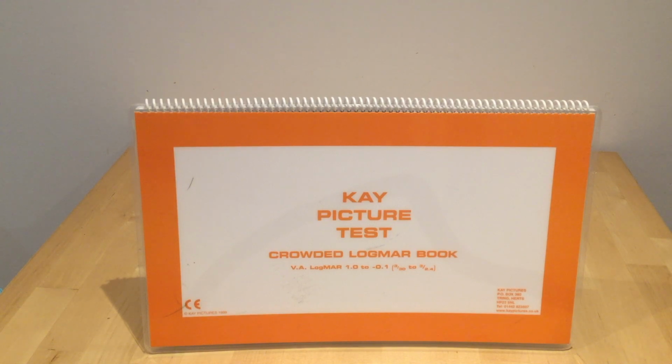and people often come back from being out on visits with lots of post-it notes stuck to the pages so that they can come back and figure out what the acuity was that the child managed to get, and ask for lots of advice from different colleagues. So I hope to clear it up just now.